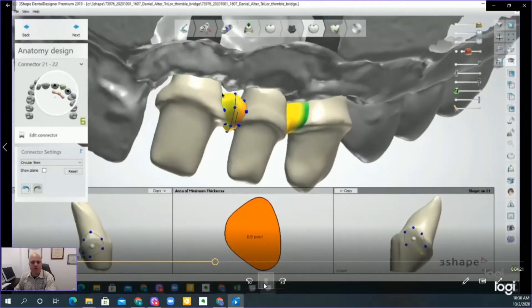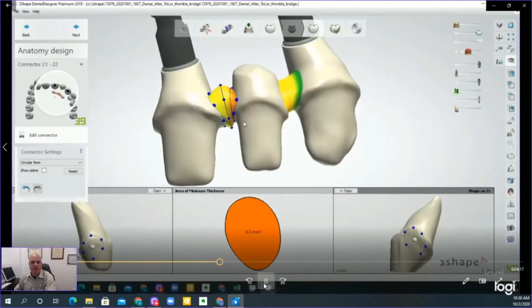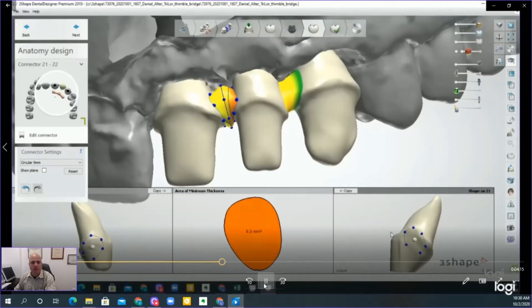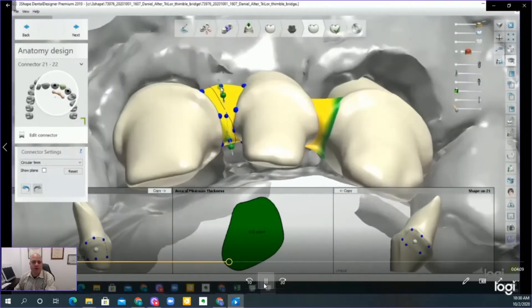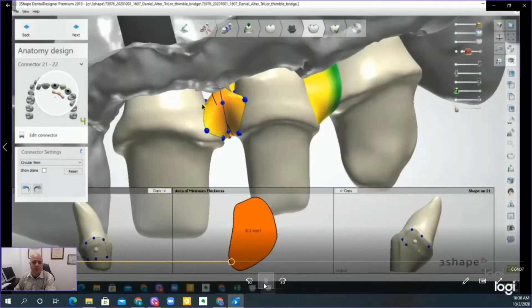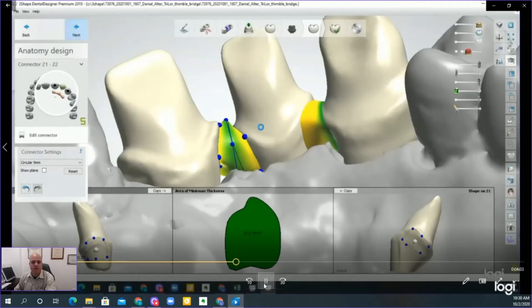By creating it this way, we're preserving the margin for our crowns. Everything in between we can adjust all the way down to the tissue. The greater the mass and thickness, the stronger the material is, just like with any other material. This material calls for a nine-millimeter-squared connection to design.